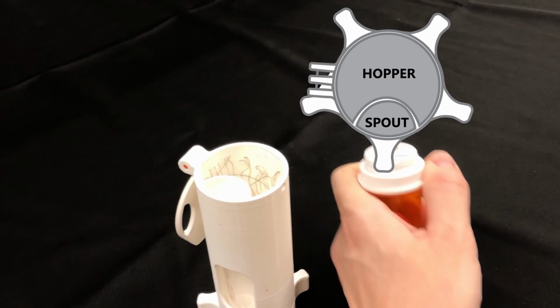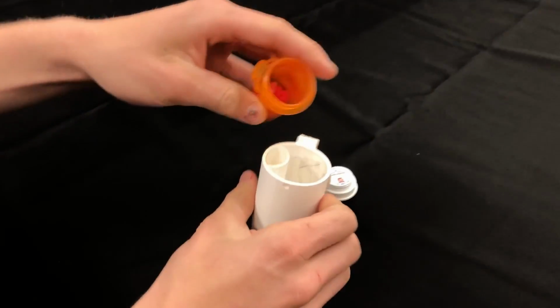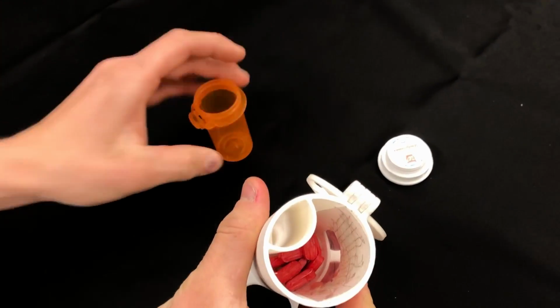With the top cap open, the pills from a pill bottle can be poured into the hopper section. Once this is done, the top cap can be closed back up.